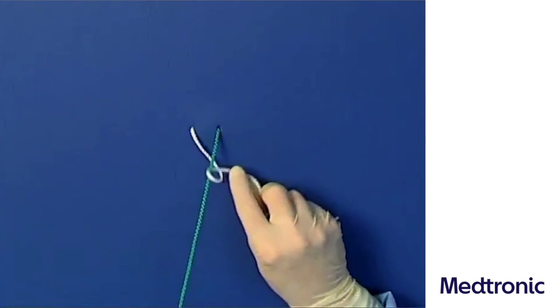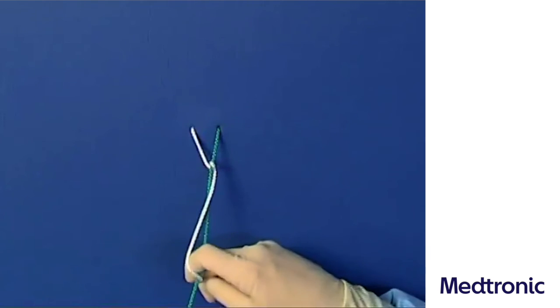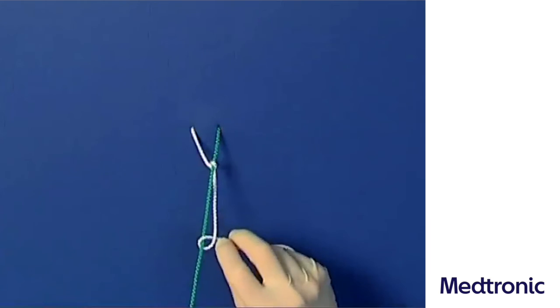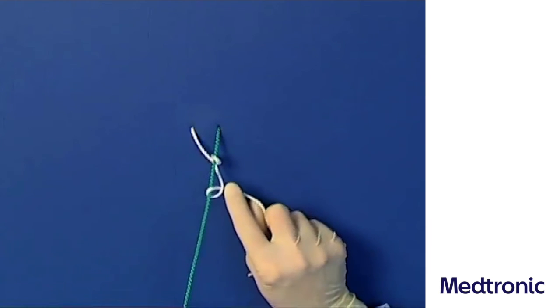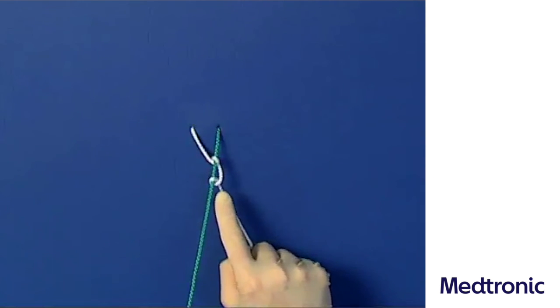Now an opposed loop is formed using the same technique as in the Sailor's Knot. If the left hand applies consistent pulling force to the right thread, this knot becomes an overthrown slipknot, which differs from the Sailor's Knot only by the direction of pulling force.